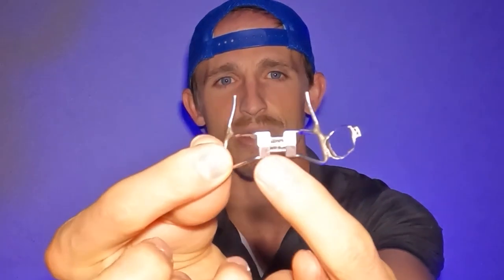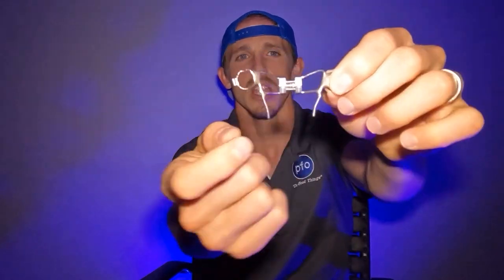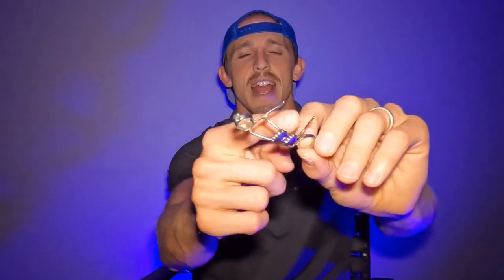There are different kinds and variations of expanders. Same concept — it's got those bands in the back, metal arms that come to the front and rest against the teeth, and then a middle section where you have the screw and you put the key in and turn it. This one doesn't have that really cool pink stuff that goes against your palate. Different orthodontists like to use different styles of expanders, and they can add things on to help with different problems or different tooth configurations.